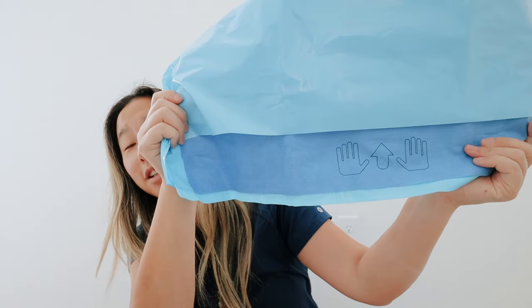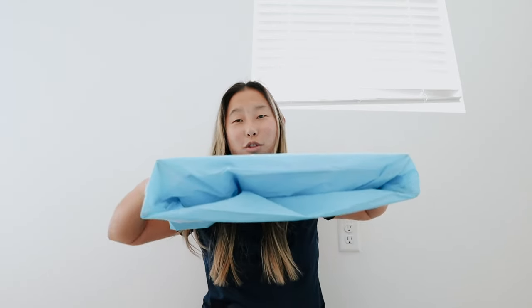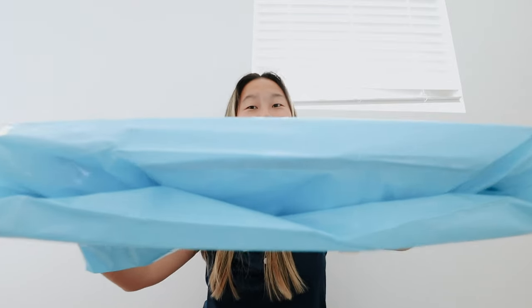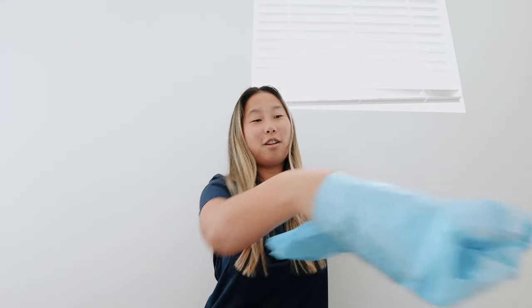And last but not least, I have a mayo stand cover. When you have that little table that sits above the patient, you have a mayo stand cover to drape the mayo. You put your hands under here like this, with the table, and you shove the mayo stand cover over it. So like the mayo stand goes through this opening and you just shove it on there.